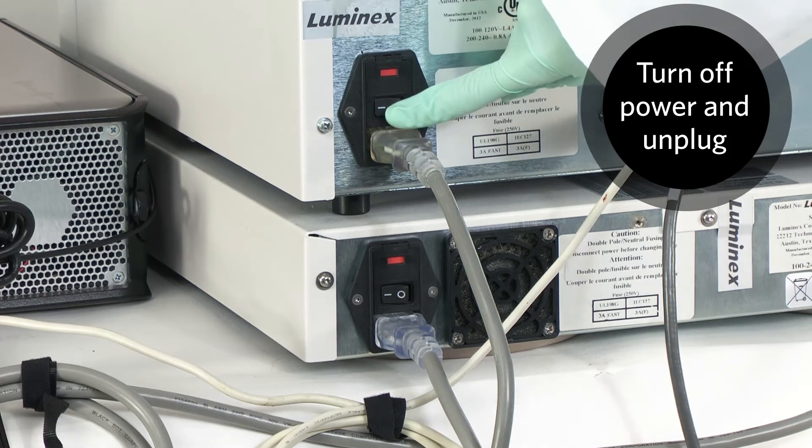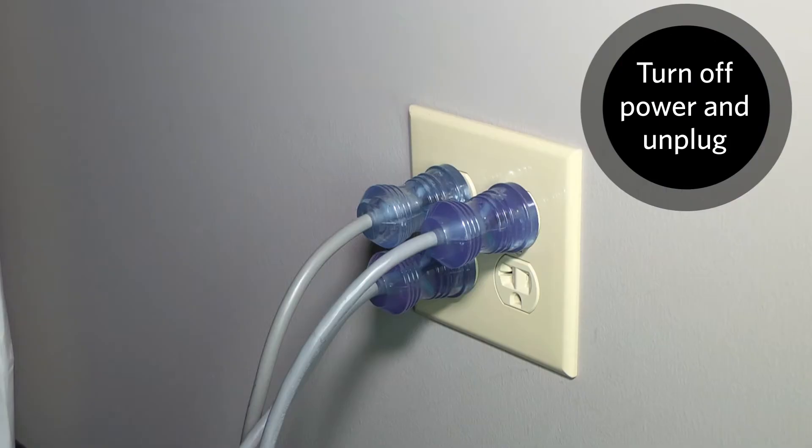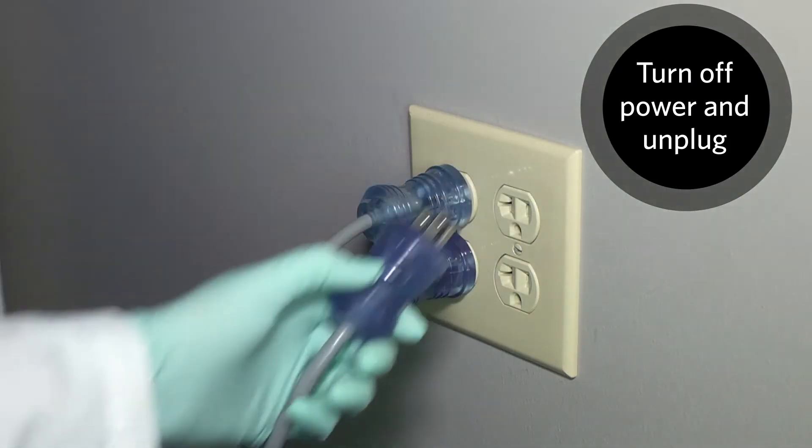Turn off the power switch on the rear of the analyzer and unplug the power cord from the wall source.